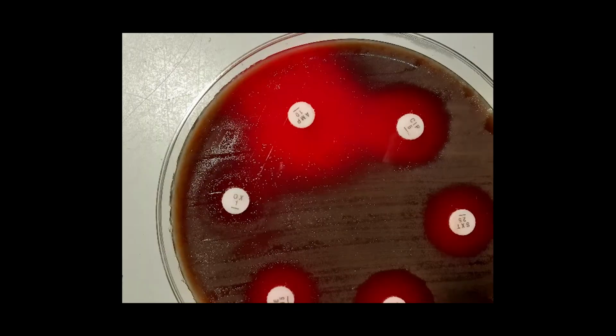The same premise is true for over-incubation of test and control plates. If the control samples appear resistant when they should be sensitive, it may be due to extended incubation, and all test and control samples should be repeated. Plates should not be read if they have been incubated longer than 24 hours in total, as this may impact the results. If the plate contains more than one morphology, or the resistance profile appears mixed with sensitive and resistant/intermediate colonies, then a purity plate should be made and the antibiotic sensitivity plate repeated from this pure growth.